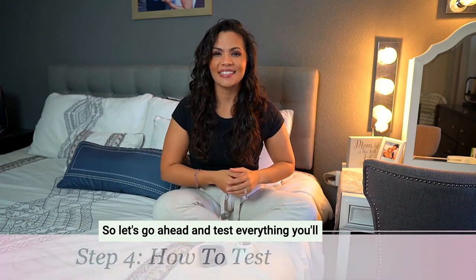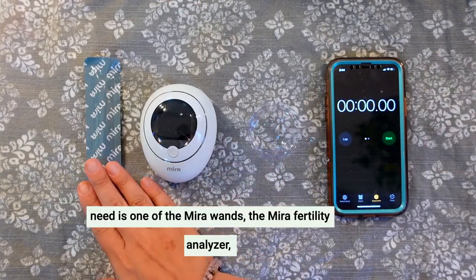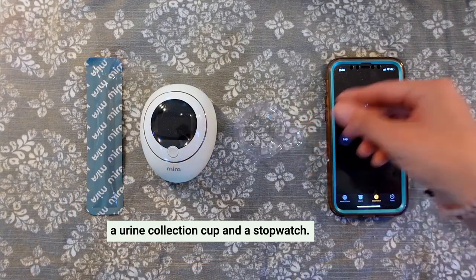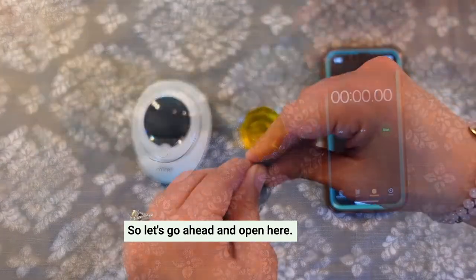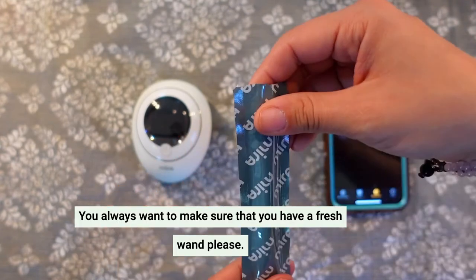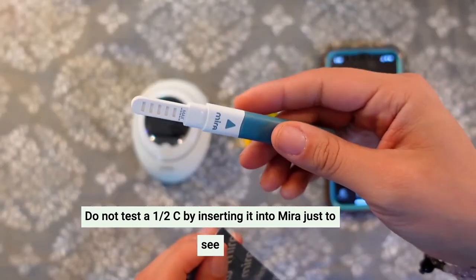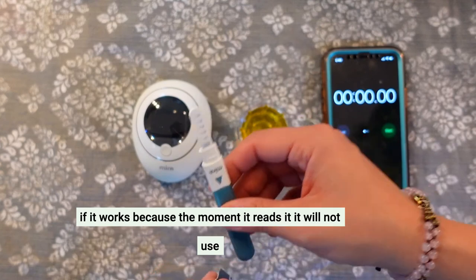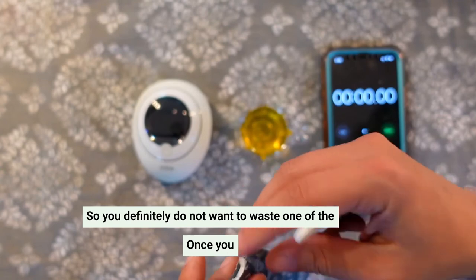Step four: how to test. Let's go ahead and test. Everything you'll need is one of the Mira wands, the Mira Fertility Analyzer, a urine collection cup, and a stopwatch. Please do not test a wand by inserting it into Mira just to see if it works, because the moment it reads it, it will not use it again. So you definitely do not want to waste one of the wands.